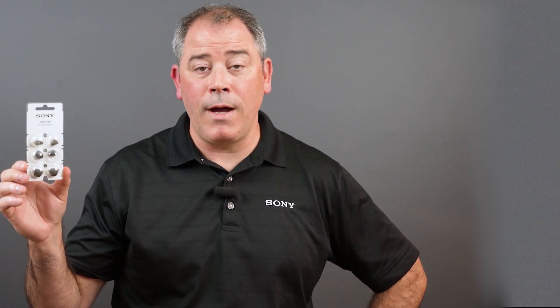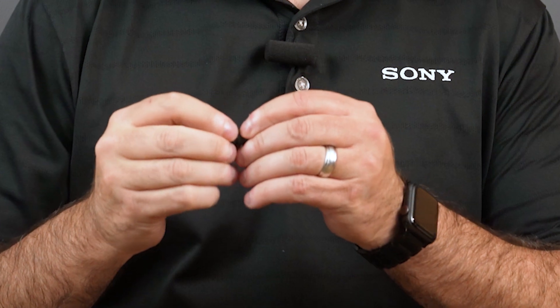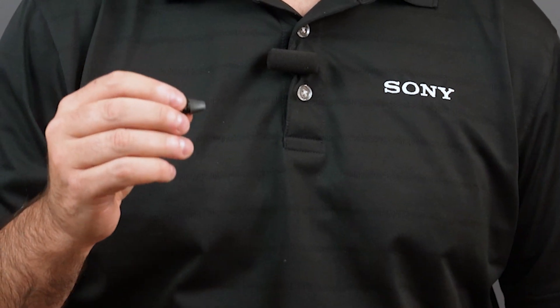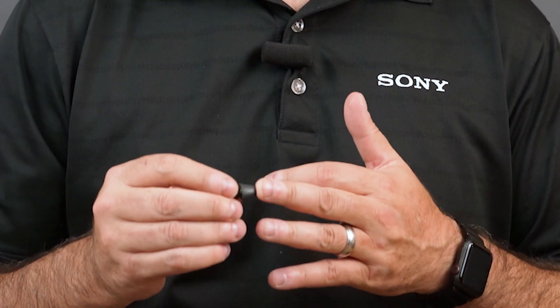Should you need to swap them out, you just have to simply remove the vented click sleeve and slide the new one on. Luckily, small seems to fit right for my ear. You just need to pull and twist and wiggle and remove the sleeve. Select the next size and press that on gently. You will know it's on when you hear a click, then try that size out for a couple of days and adjust as you need.